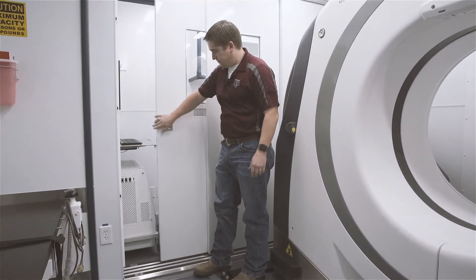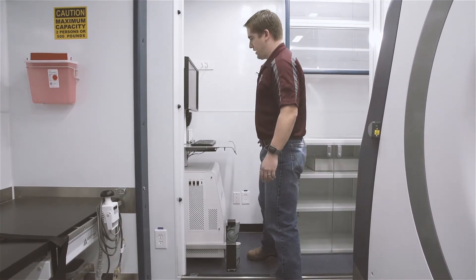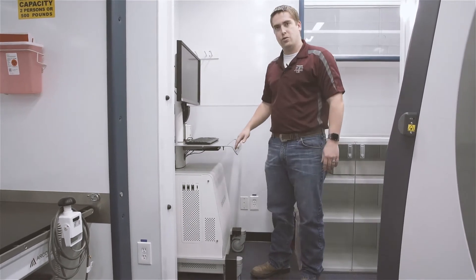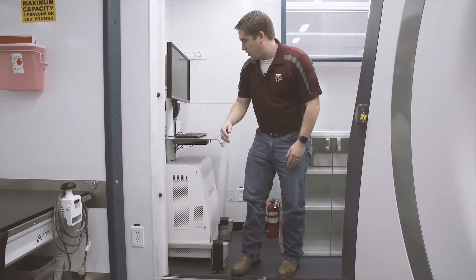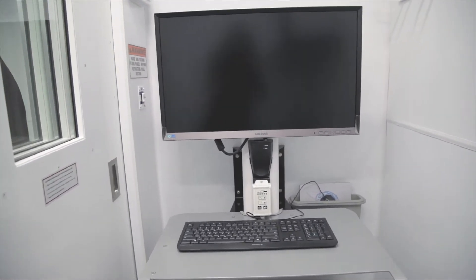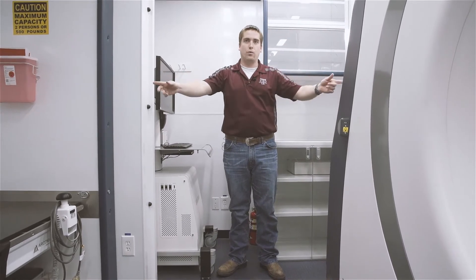On the inside here is where the scanner is operated and the scans can be viewed. If you open this up, you'll notice this workstation. This workstation was designed to be a portable workstation for a hospital, but out of an abundance of caution we wanted to secure it in place. We have specially designed brackets helping to secure it to the floor as well as to the wall. The operator can stand over here, close the doors behind them, run the full scan, and be completely protected from the radiation. This wall section has lead in it, and there's lead strategically placed in the side walls of the unit as well.